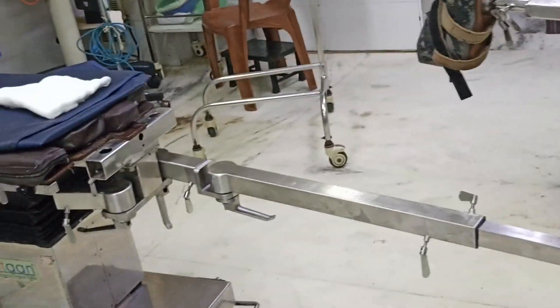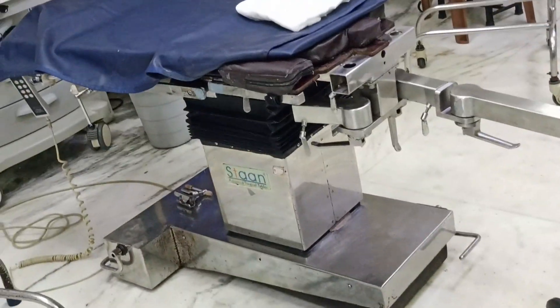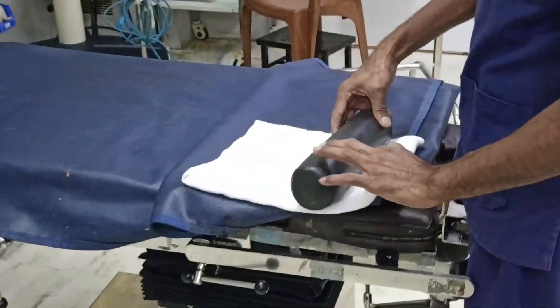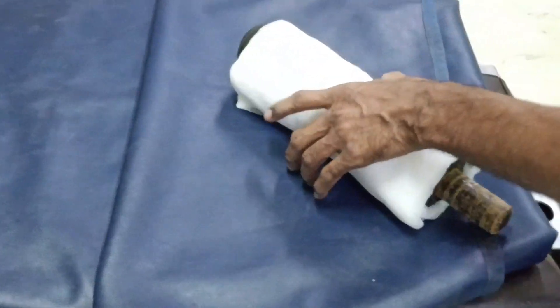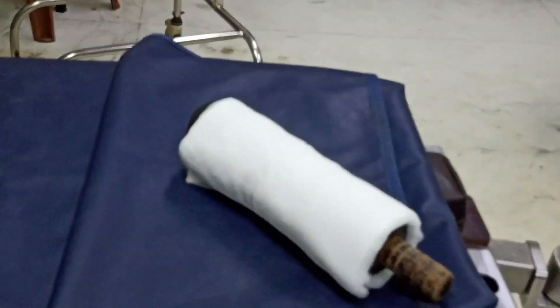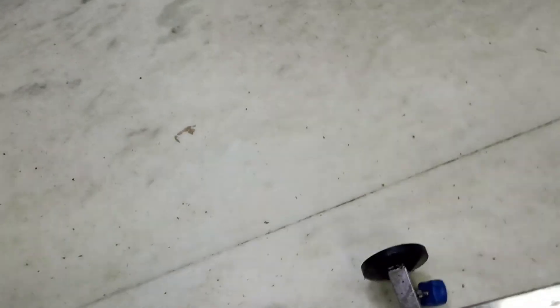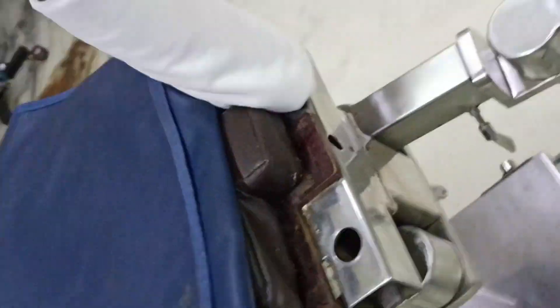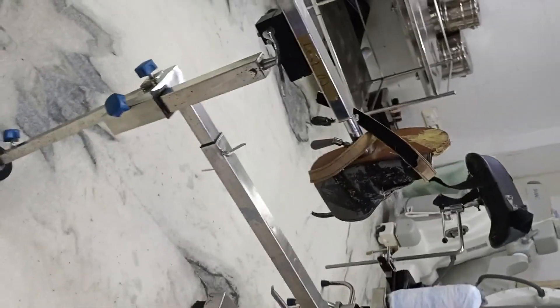Opposite to the fractured side, there will be a lithotomy base. This is the pubis board.